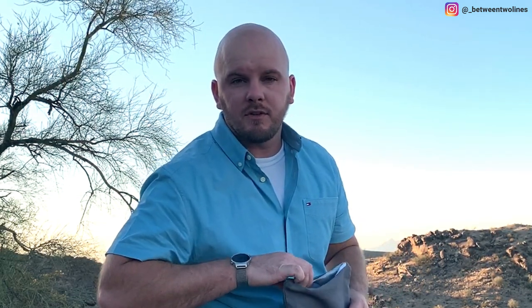So today is a lucky day for you guys. I'm gonna let you see inside my Dexcom Warrior Gear bag. Inside this bag are the tools that a new type 1 diabetic will have to use to manage their diabetes. The first thing is their tester — the glucometer — the meter you test your blood sugar with.